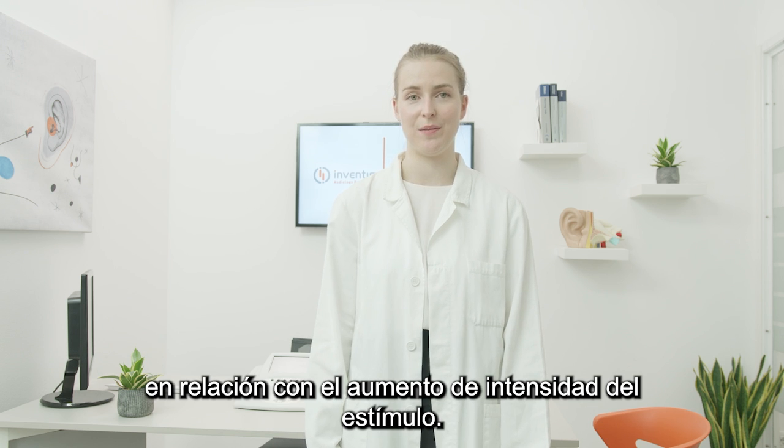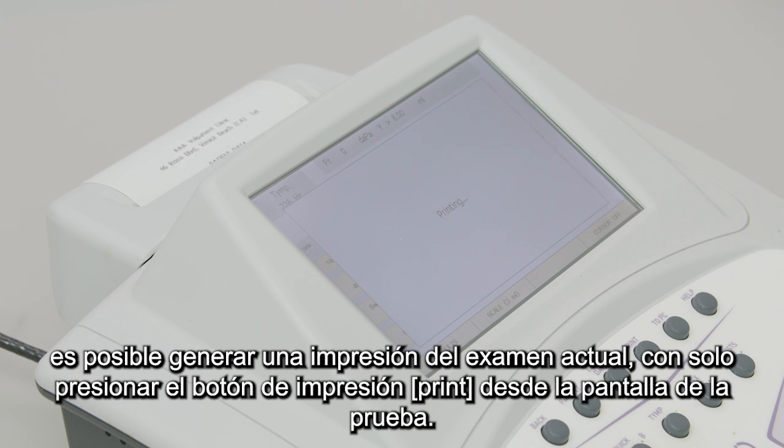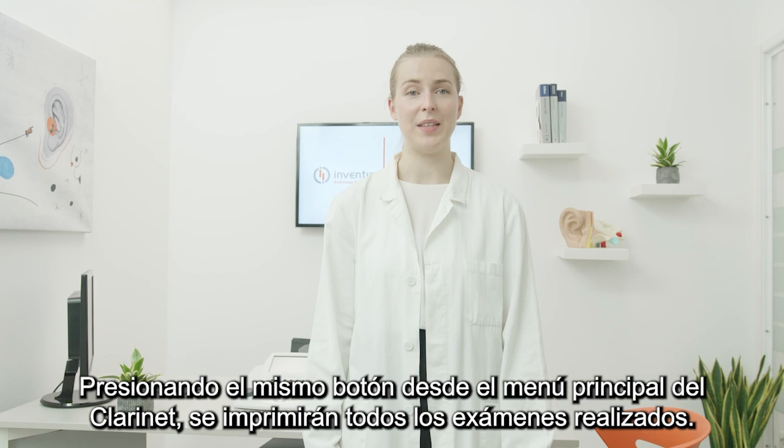If your Clarinet has a built-in thermal printer, it is possible to generate a printout of the current examination just by pressing the print button from the exam screen. By pressing the same button from the Clarinet main menu, all tests conducted will be printed.